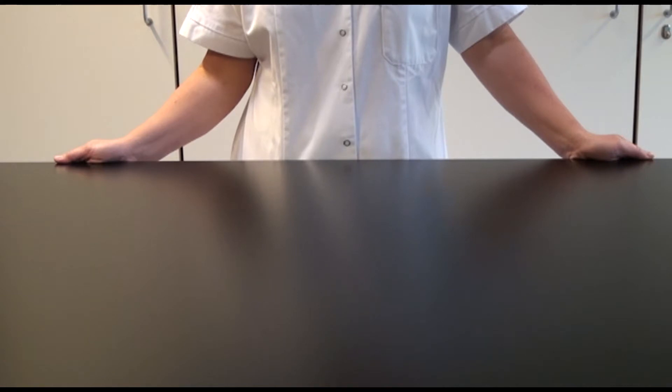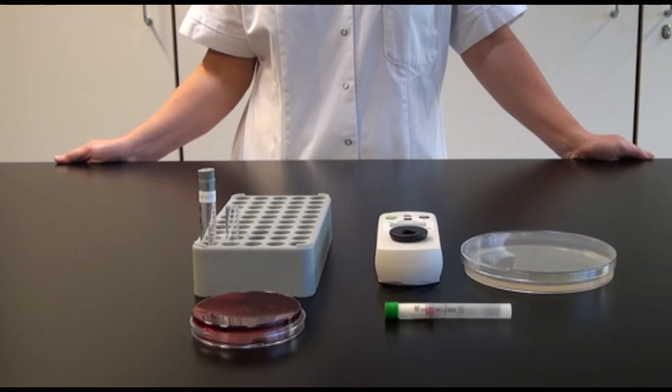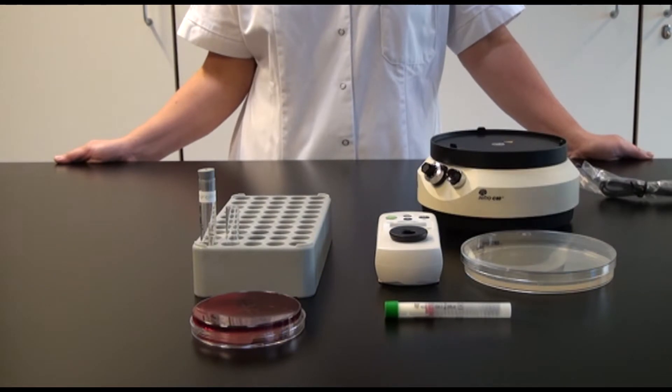We will use E-test, 5% blood plate, density check, resistance plate, tablets, plate spreader, a pincet, and a marker.